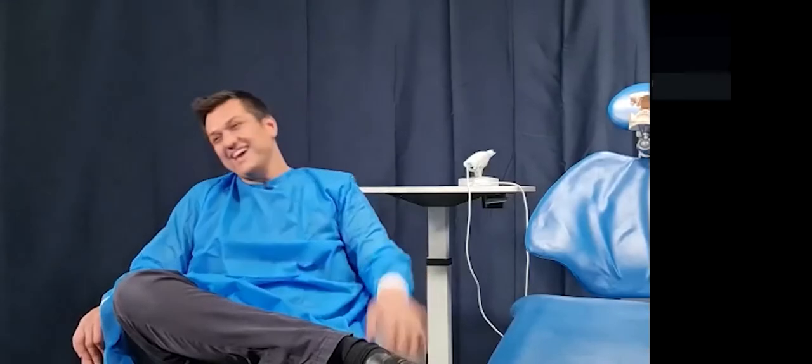Perfect. Look, we tend to see a lot of people not having a lot of trouble with taking scans for fully dentate patients. But when it comes to the partially or fully edentulous patients, we see that a lot of the users tend to go back towards impressions. Why do you think that is? So you mean they didn't cross the line? No, they don't cross the line. That's right. Why don't you think they do that?